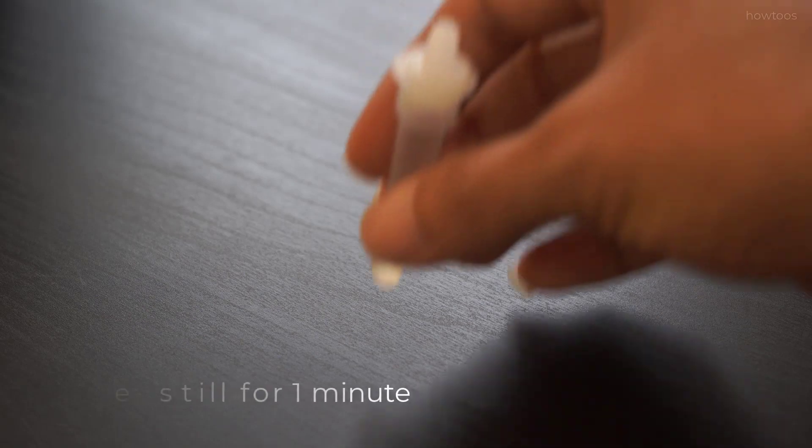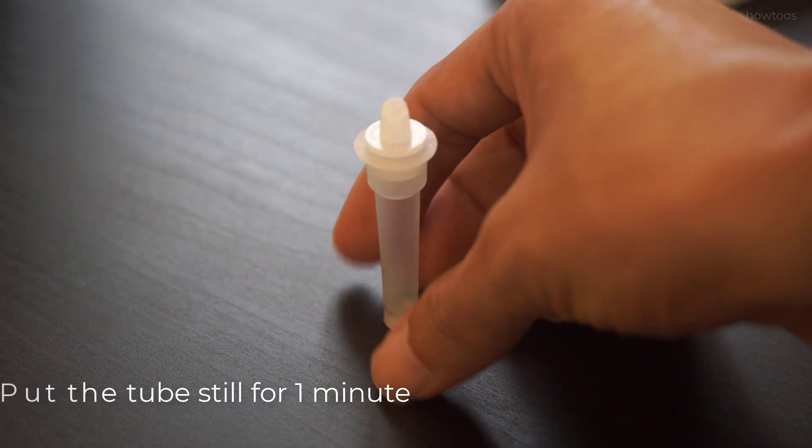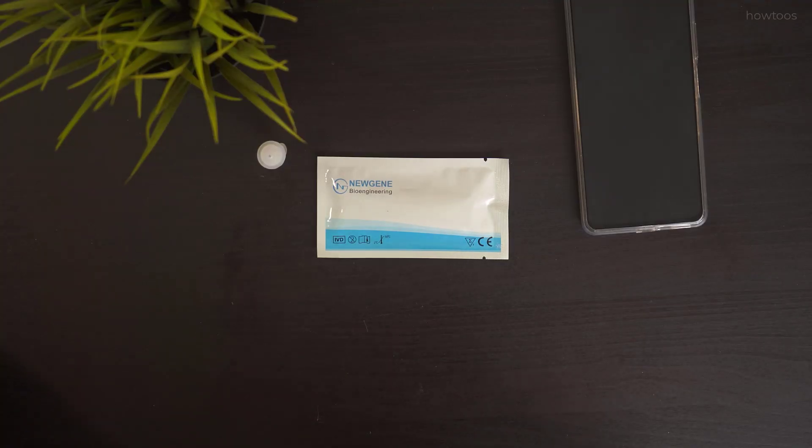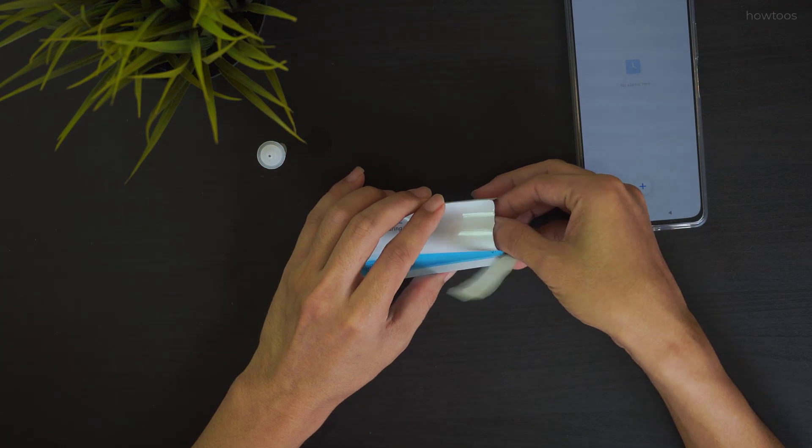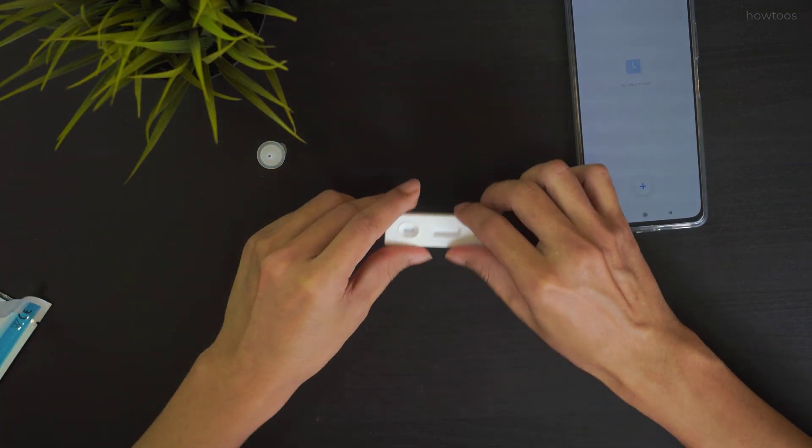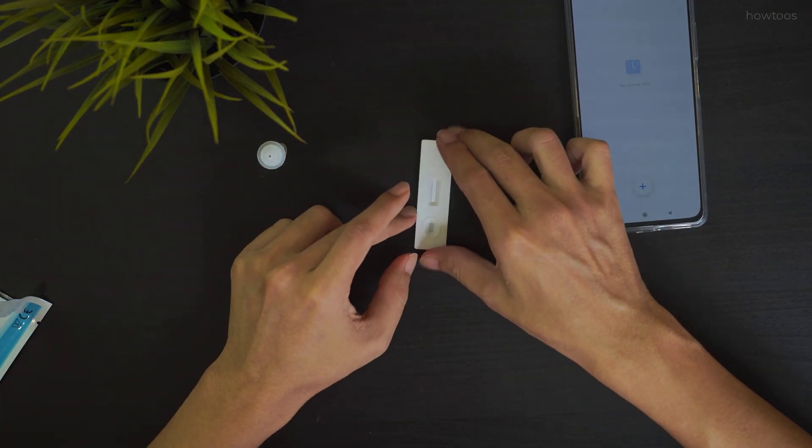It is now time to test the sample with the test card. Unwrap the test card. Do take note that you can only do one test per test card. Any extra test or mistakes will result in error.